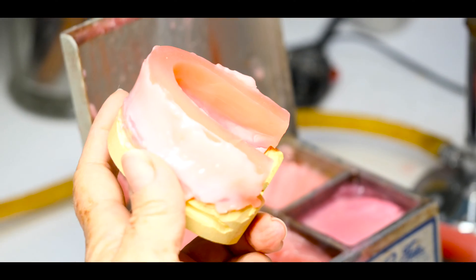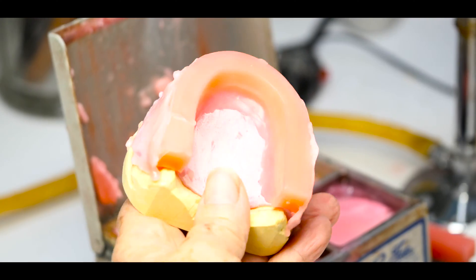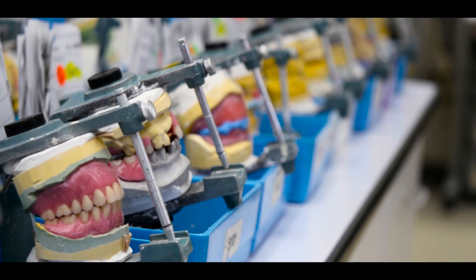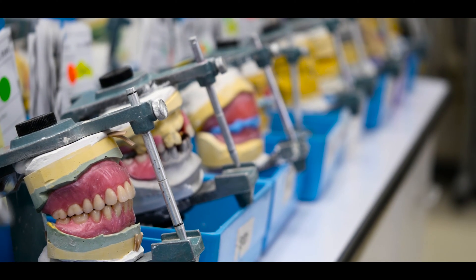It's a good quality too. Absolutely — we're using Ivoclar acrylic and good teeth. As long as the prescription is done right by the doctor and they fit great, they're a great working alternative to some of the more expensive dentures.